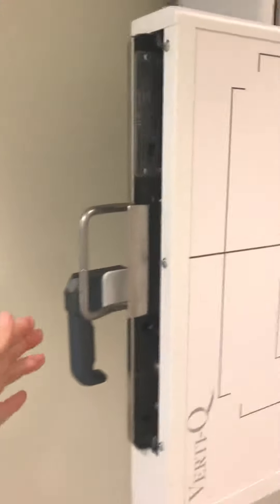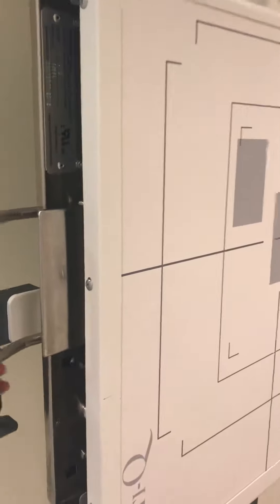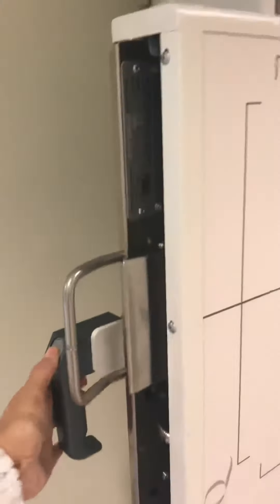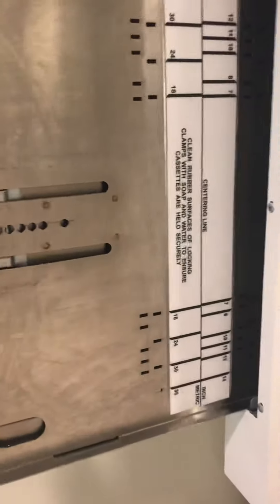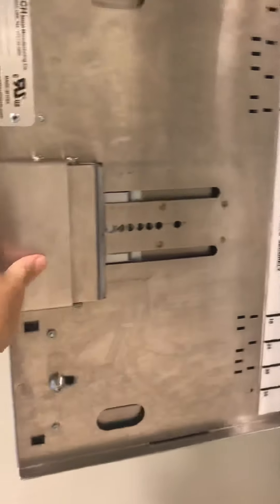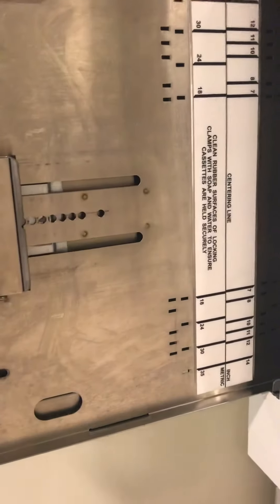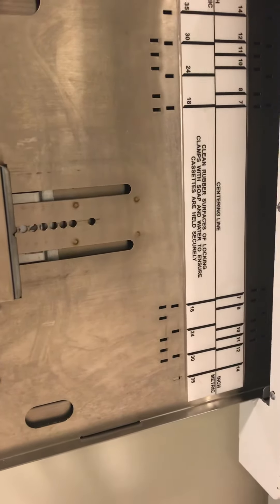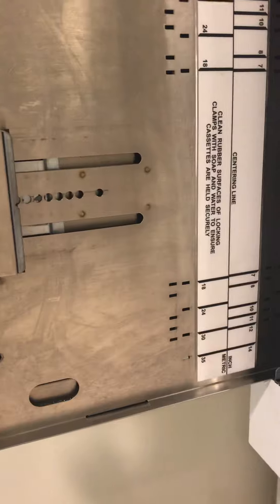There's a handle that allows you to raise the wall bucky up and down depending on the patient's height, and here is the tray where you would place the DR plate. It's just like the tray that's in the table, but it's on the wall bucky.